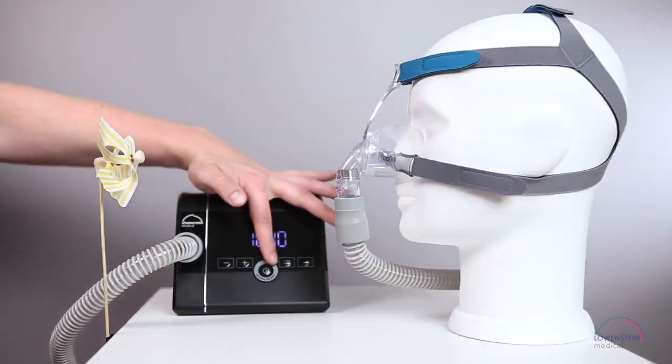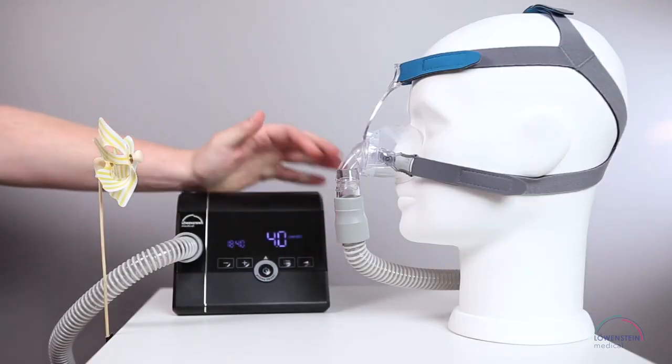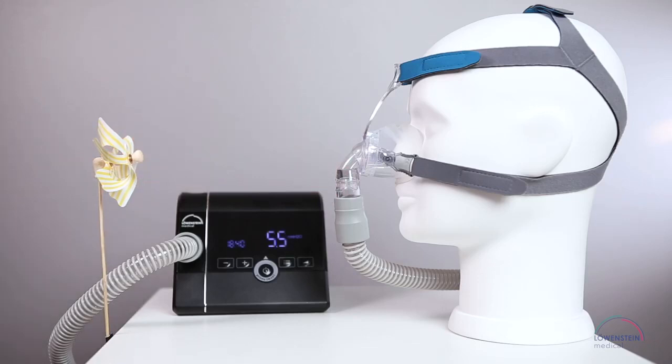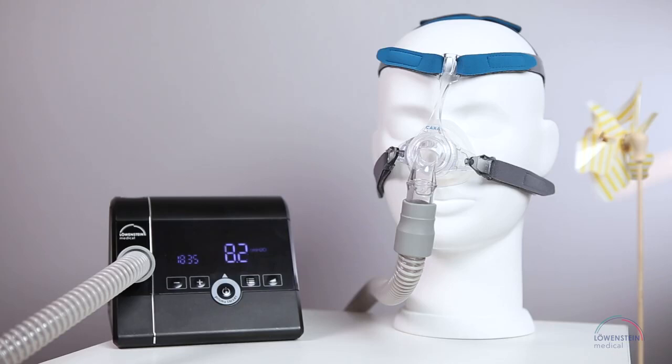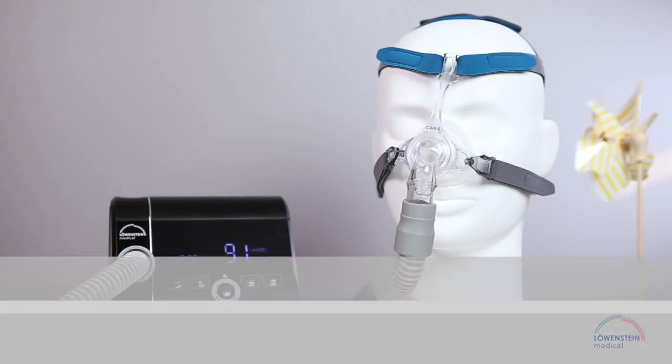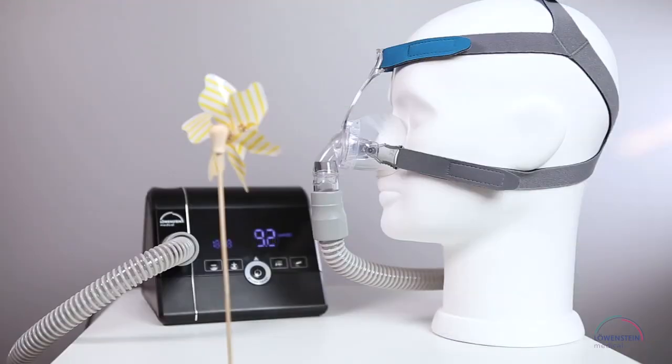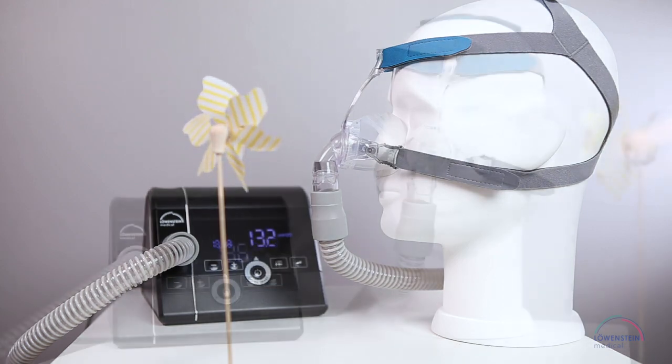The exhalation system of all masks from Löwenstein Medical emits your exhaled air so diffusely that neither you nor your bedmate is disturbed. The air flows away on the sides of the mask and can be felt only at significantly higher pressure, as you can see clearly in the whirling of the little pinwheel.